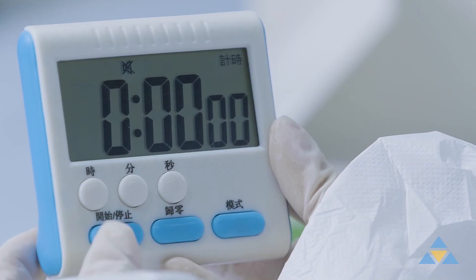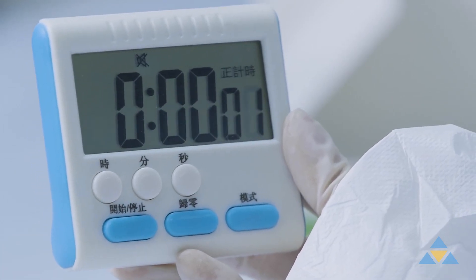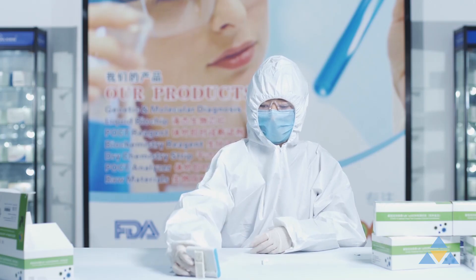Results should appear in three minutes. Any interpretation after 10 minutes should be considered invalid.